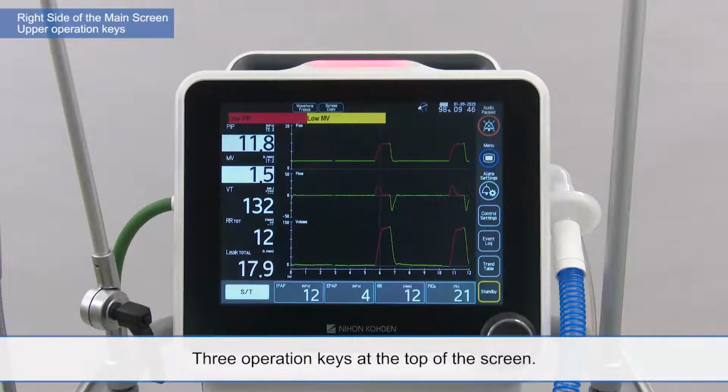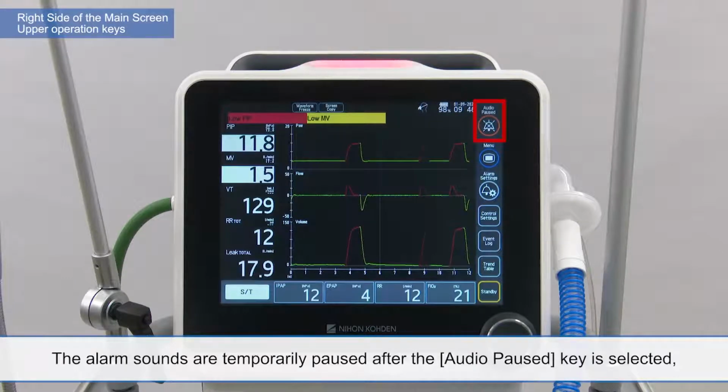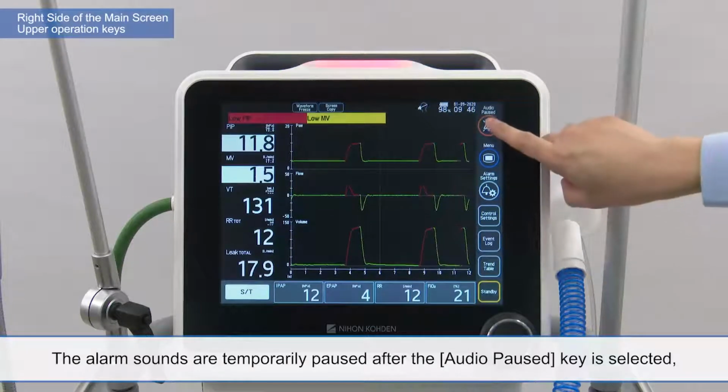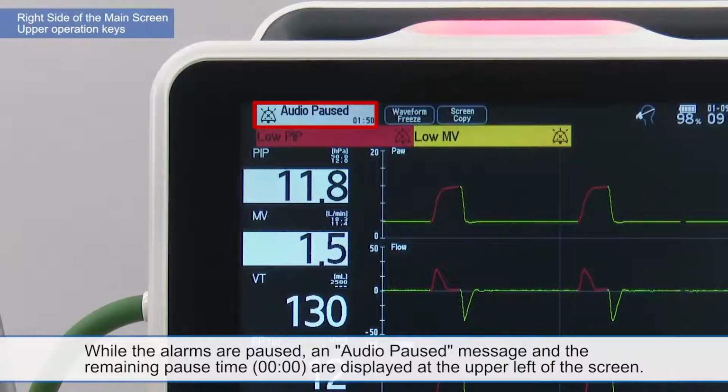Three operation keys at the top of the screen. The audio paused operation key is displayed at the top. The alarm sounds are temporarily paused after the audio paused key is selected, and an audio pause icon is displayed beside the alarm messages for alarms that occur while the audio is paused. While the alarms are paused, the audio paused message and the remaining pause time are displayed at the upper left of the screen.